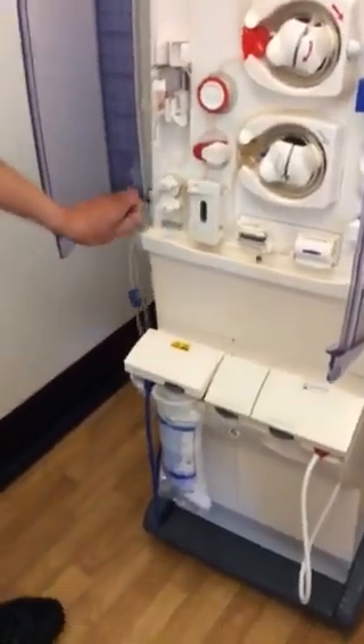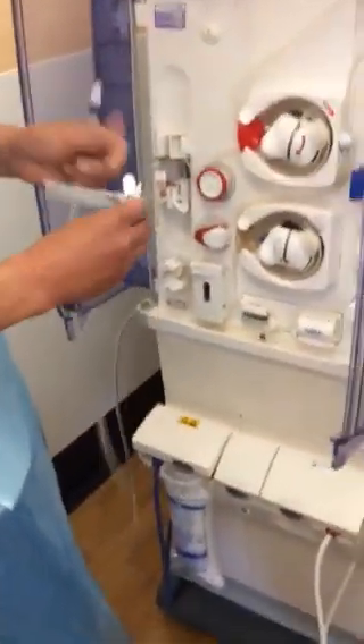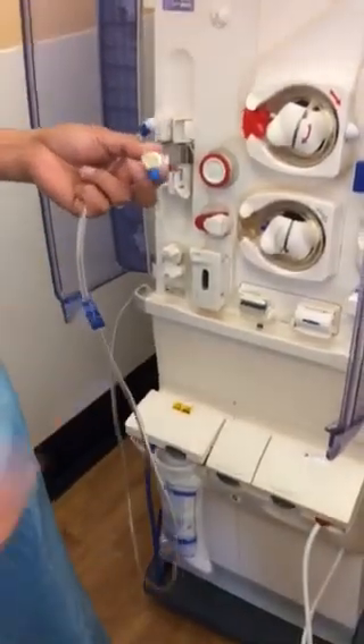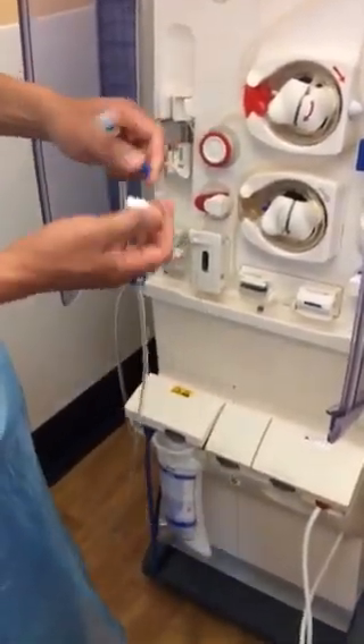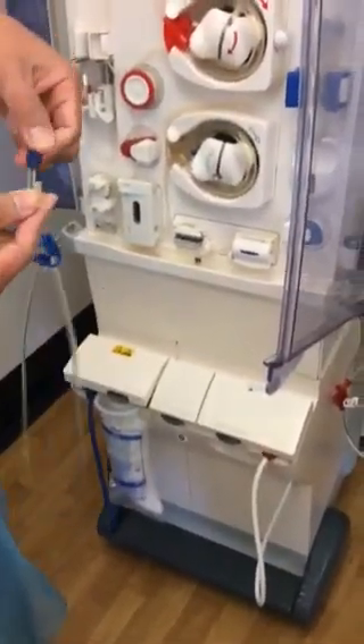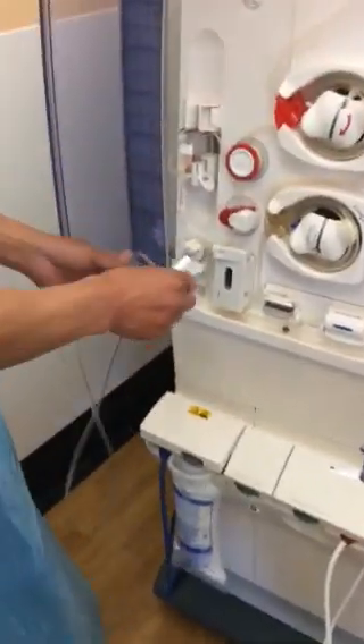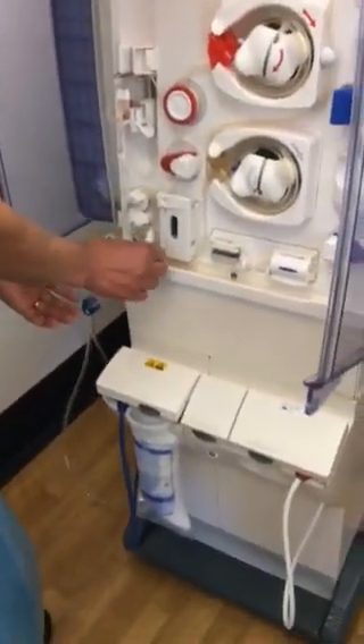With this one, you will need the connector — which is here, this blue one. This is the connector. You see the sign? Try not to hold that one, because it's important. Can it get twisted? Like that? And same thing, just put it back in again.